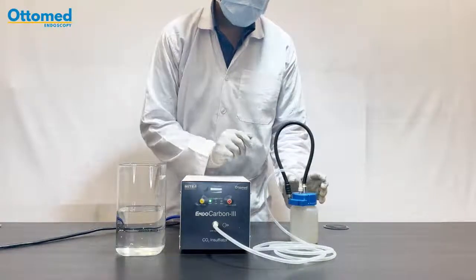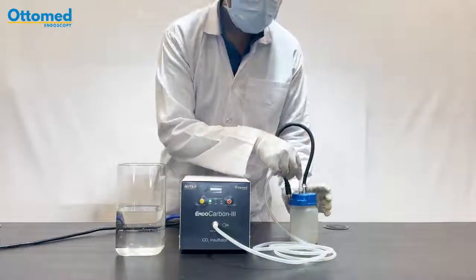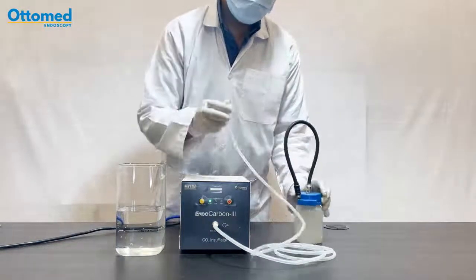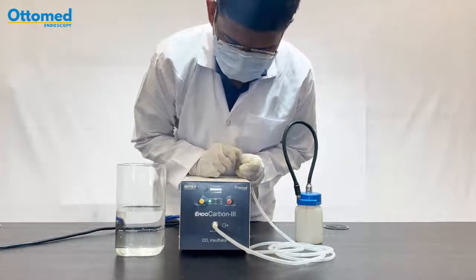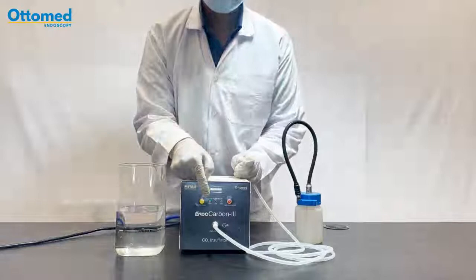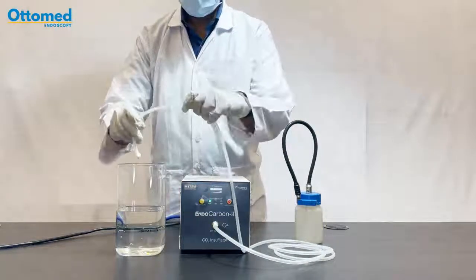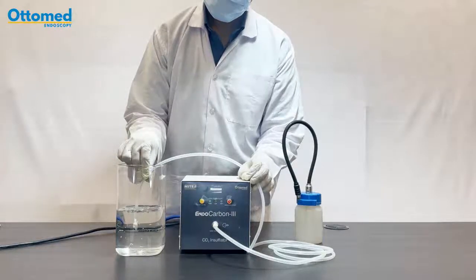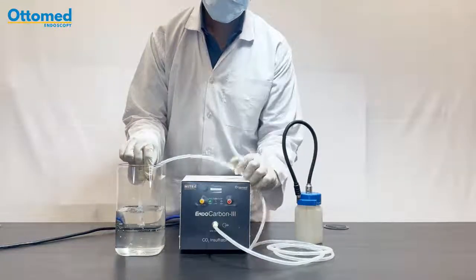I have attached the outlet tubing to the bottle and starting the gas flow. Now this LED is blinking, which means your flow has started. You can see the flow inside the water — this is the CO2 flow.